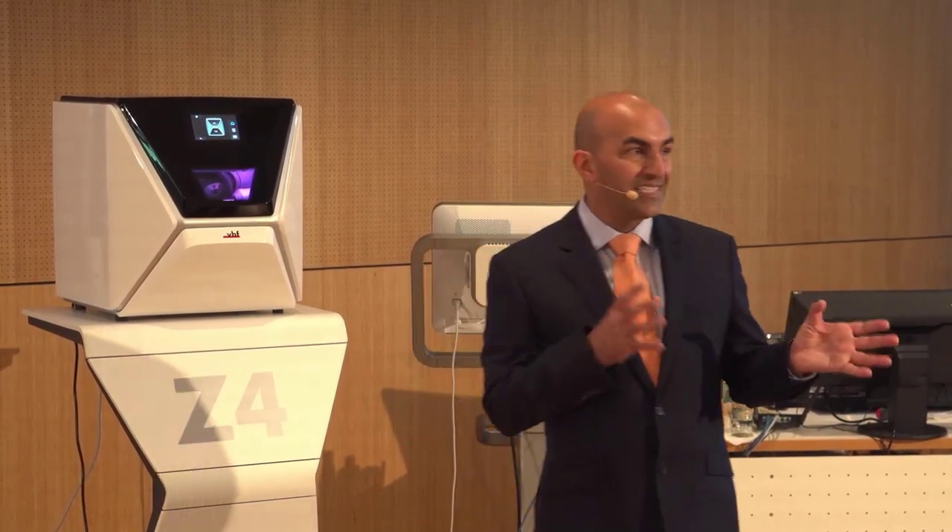Today I'm going to run through real-life cases and show you two different platforms. One of them is Chairside CAD, a platform I use daily in my practice, and I'm also going to show you Exoplan. Exoplan is Exocad's implant planning and guide creation software. You'll get a sneak preview of the absolute latest edition — Galway — which isn't quite available yet, but as a beta tester I've been allowed to show it.